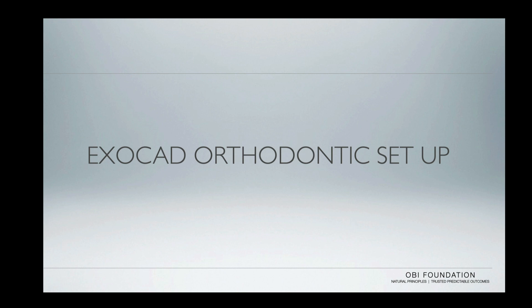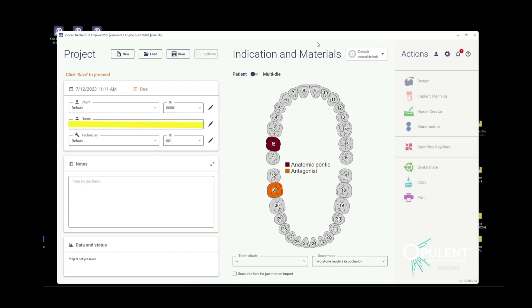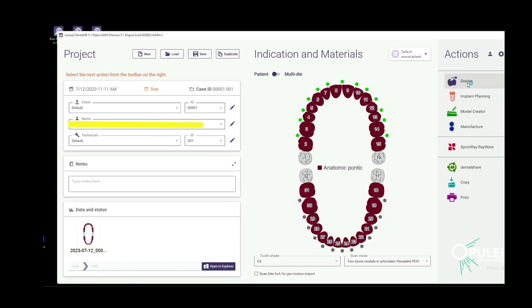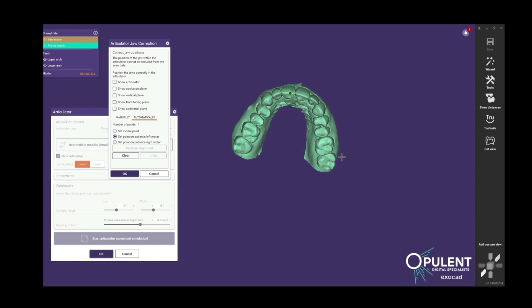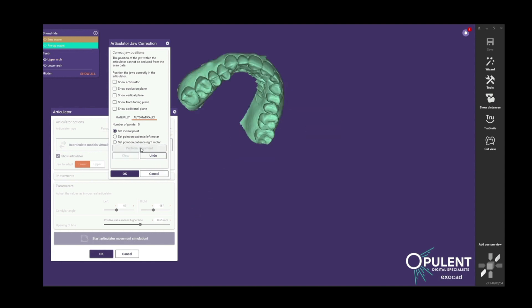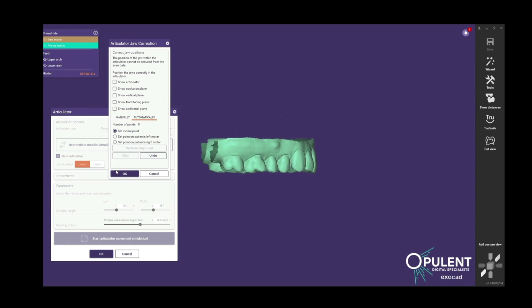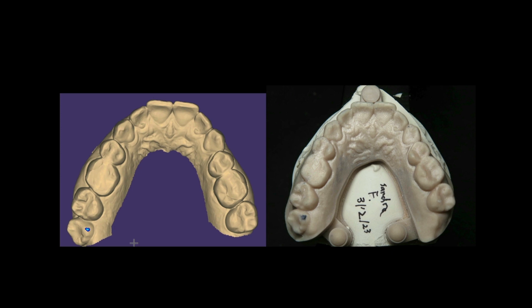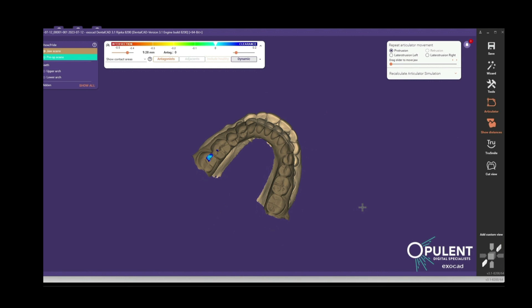Now let's look at the ExoCAD orthodontic setup and the workflow there. Once again, all the same principles apply: we need joint in the socket, posterior centric contacts, and anterior coupling. What you're going to do is go ahead and create your work order as you normally would — in this case we're going to do anatomic pontics and also incorporate a pre-op model. We mount the case, go through our mounting, and detail it until we're happy with the proper mounting. Once that's done, we have our pre-op and working model aligned, lift the pin, go to first contact like you normally would. You can see the analog model and the digital model match at first contact.